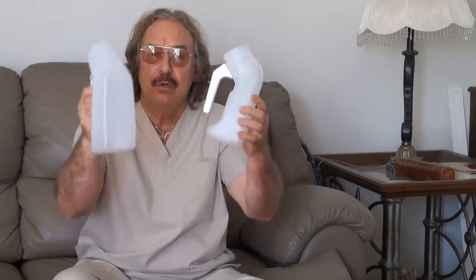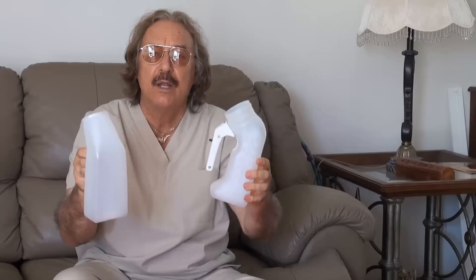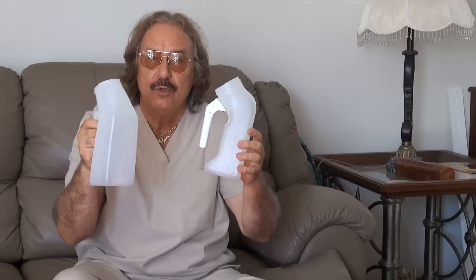It's so easy. Now I would like to show you how this really works. Please tell me — if you would have a choice to get one for your loved one, which one would you choose? If somebody asked you to recommend one of these urinals, would you recommend this plain plastic urinal, or would you rather recommend this one?